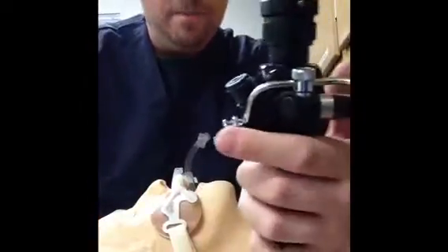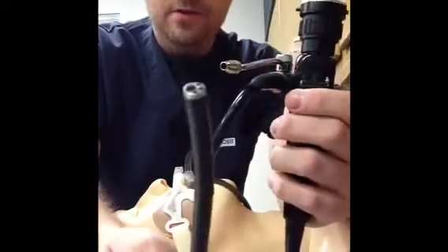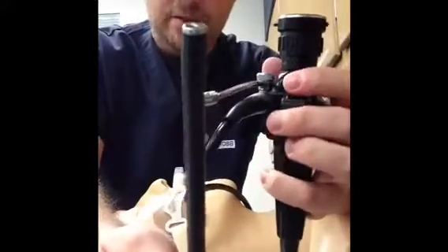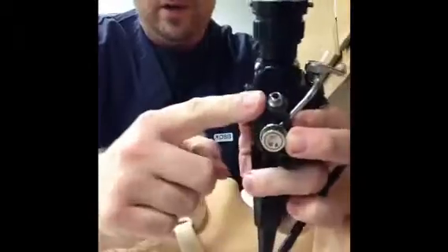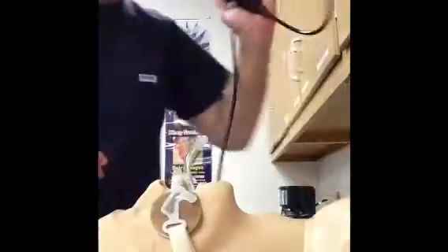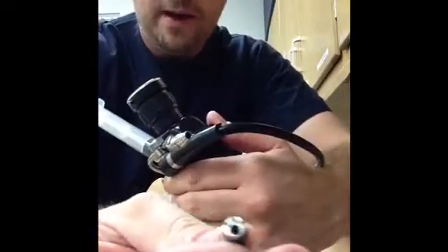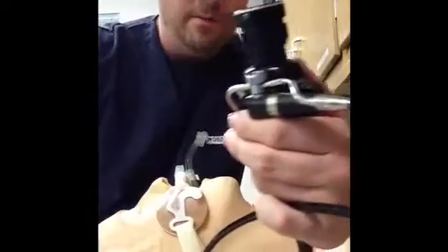When we look at the scope, some of the major components: you have a little thumb lever here, and what that does is that allows you to move and maneuver the scope around when you have it inside of the body. You also have a little port here, and you can open this up — this port allows you to instill medications. For example, if I have a little bit of bleeding and I want to instill some epinephrine in there, I simply hook my syringe up, inject the medication, and the medication comes out of this hole here.